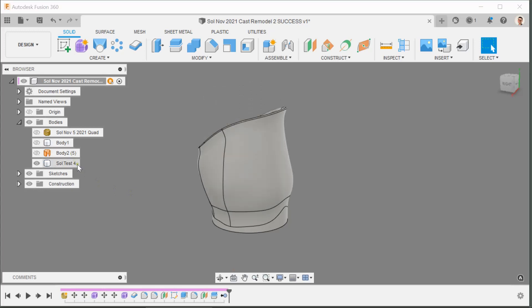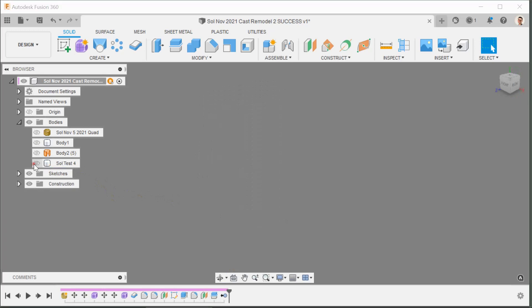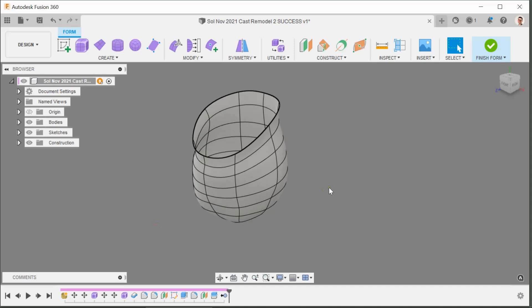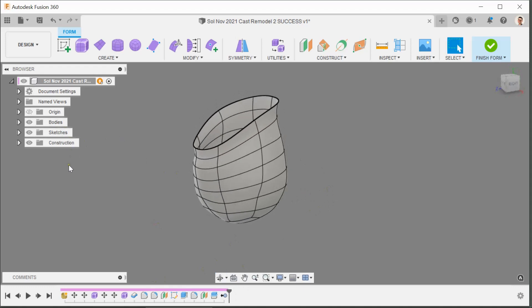I'll turn off the positive and turn off check socket 4 — we're going to be changing that to check socket 5 later. I'll go back into the create instance where I made the geometry, click edit, and that takes us straight back. Any changes I make in there will change the test socket. I'll change the name to keep all my records straight — it's really important to know what socket you're working on.